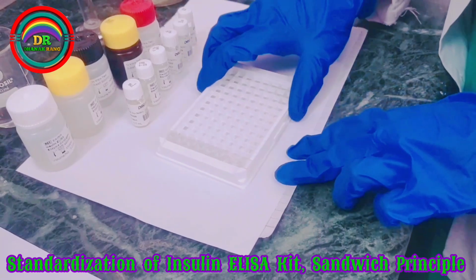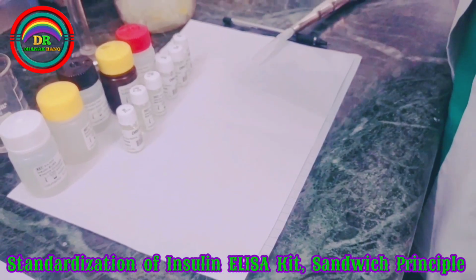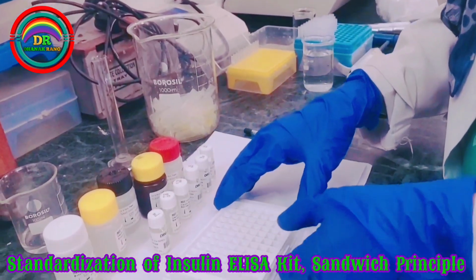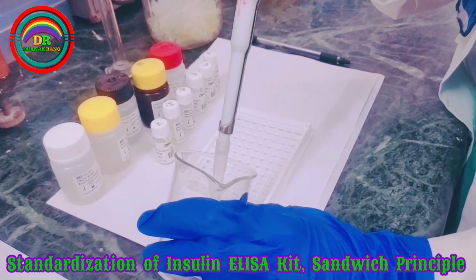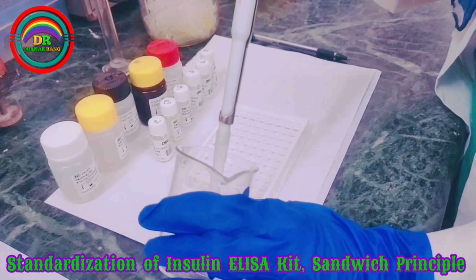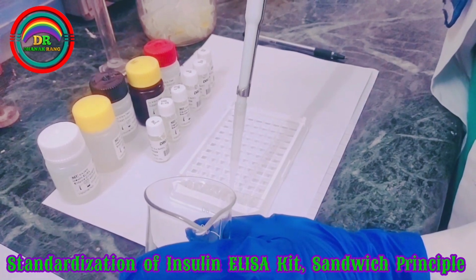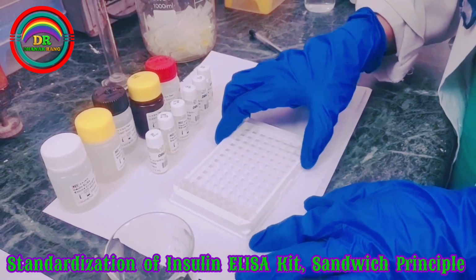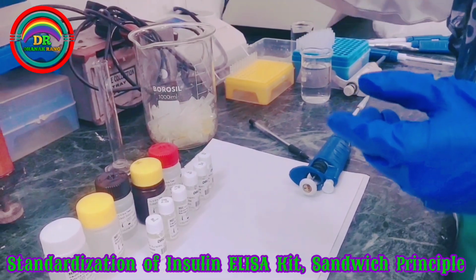So we have to do 3 times washing. This is the first time. Discard the wash buffer. And discard the wash buffer.